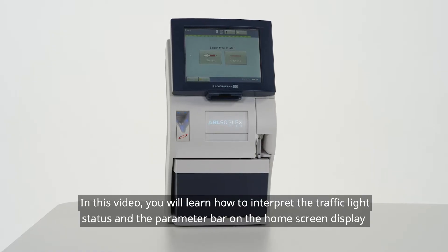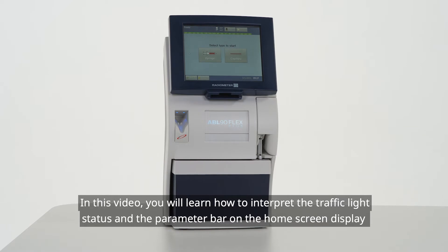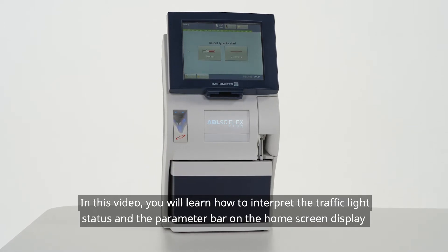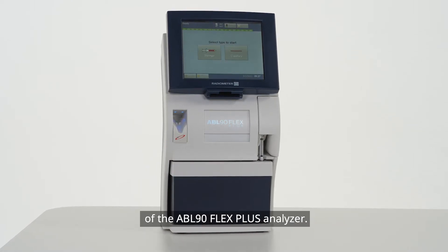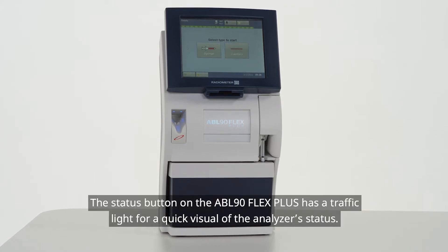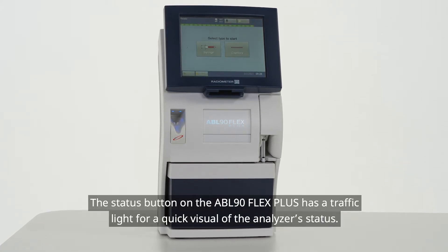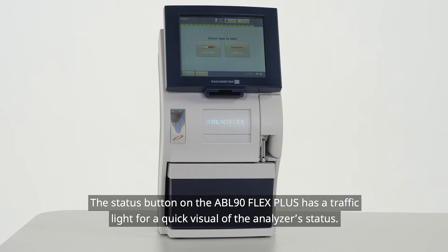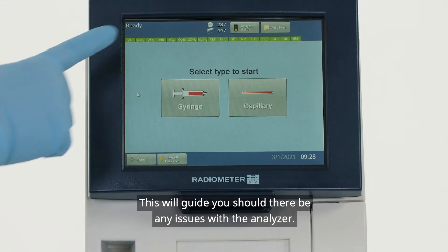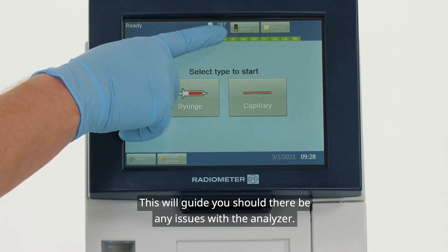In this video, you will learn how to interpret the traffic light status and the parameter bar on the home screen display of the ABL90 FlexPlus Analyzer. The status button on the ABL90 FlexPlus has a traffic light for a quick visual of the analyzer status. This will guide you should there be any issues with the analyzer.